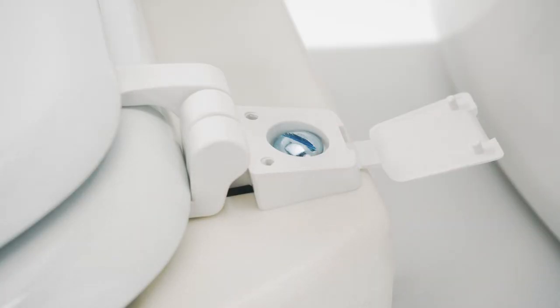It has a more secure attachment than a typical raised toilet seat. A typical raised toilet seat uses pressure inside the bowl to keep it attached. The Deluxe Toilet Seat Riser is attached with bolts to prevent shifting.